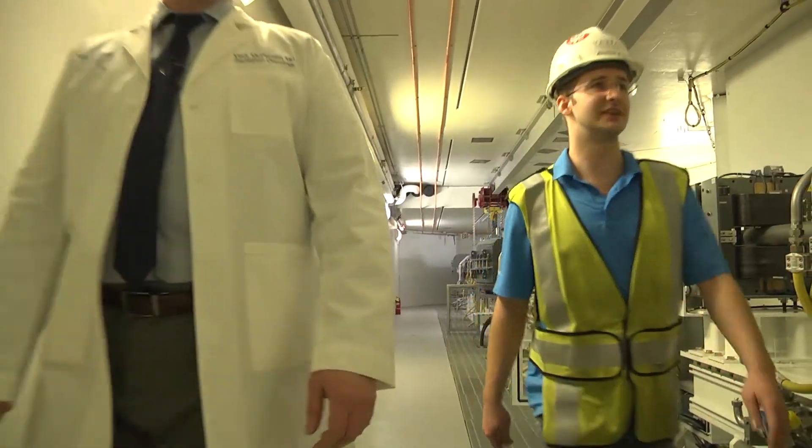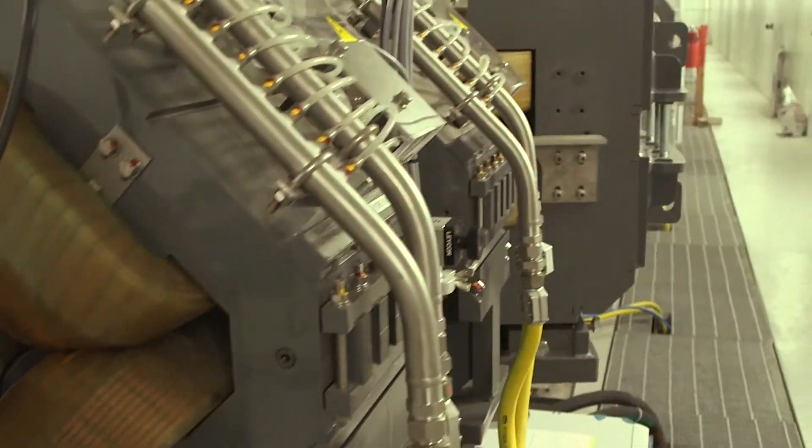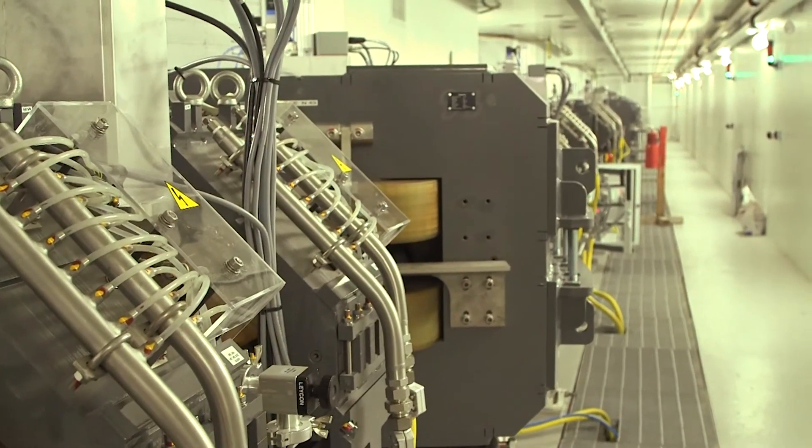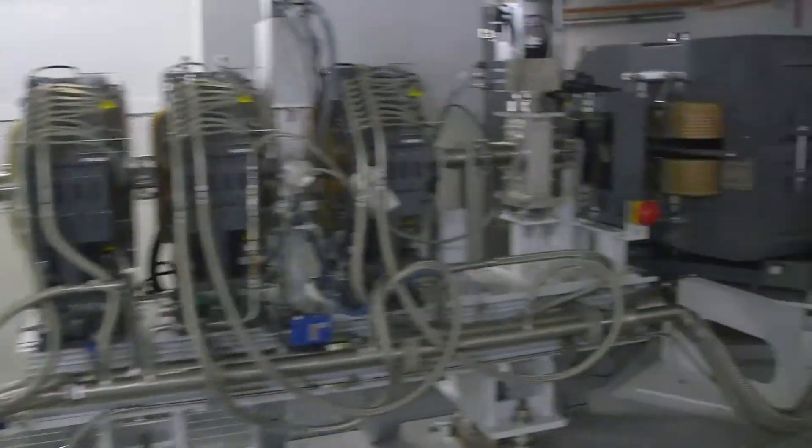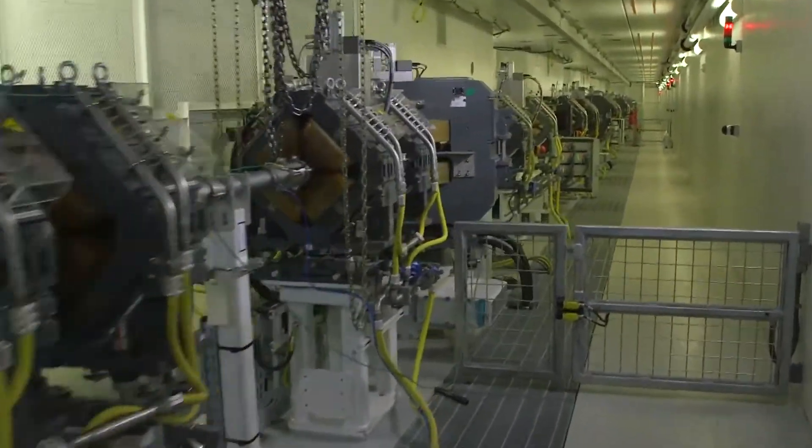The energy of the protons is then adjusted to match the needs of each patient's treatment using an energy selection system. The proton beam travels through a long vacuum tube almost 100 yards long. A series of magnets focus the beam and direct it to the five patient treatment rooms.